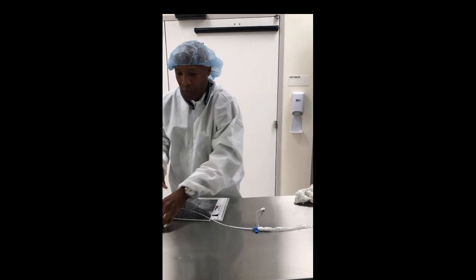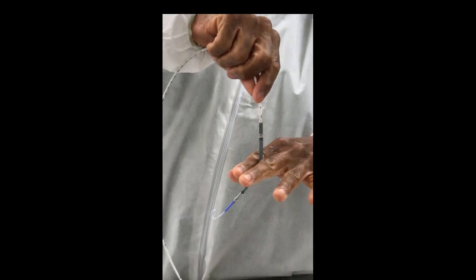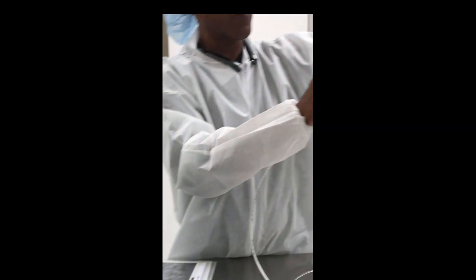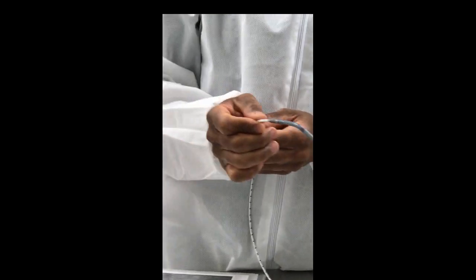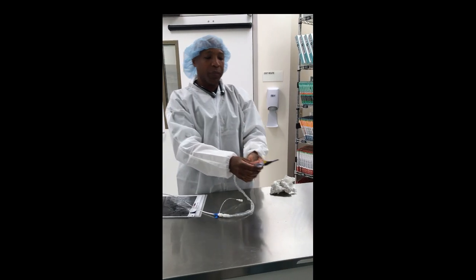You have a pigtail at the front. You have the inlet, and this is the part that sits across the aortic valve — notice it's flexible, so the valve can collapse around it and minimize the aortic insufficiency that happens when the valve opens and closes. Then you have the working part right here, where the propeller and motor are. If blood is being pulled from inlet to outlet, what's going to protect the motor? Flushing.